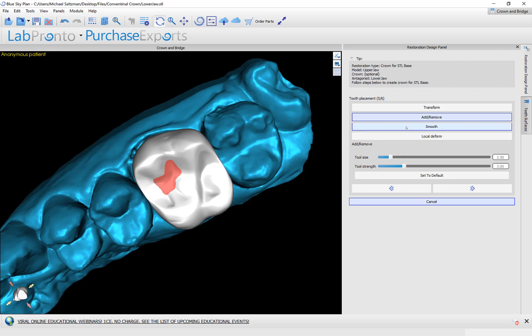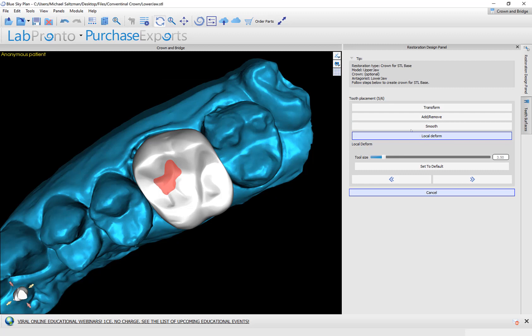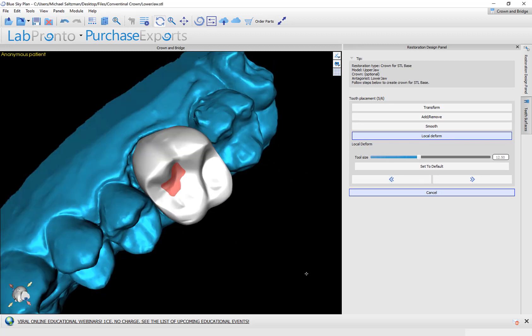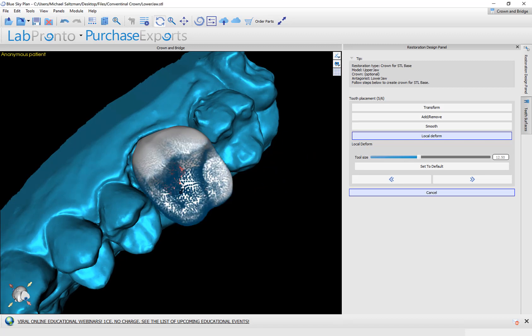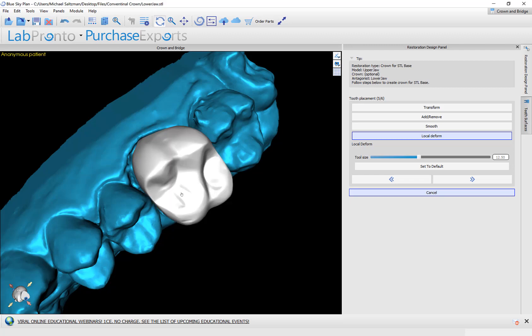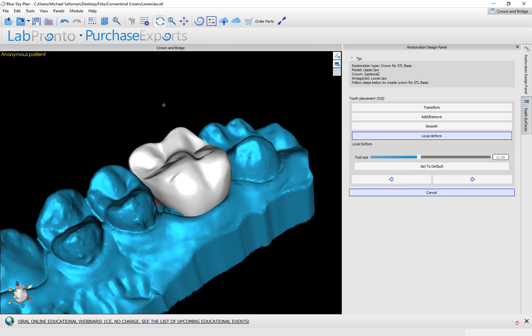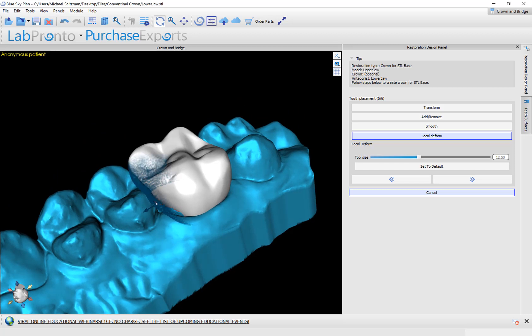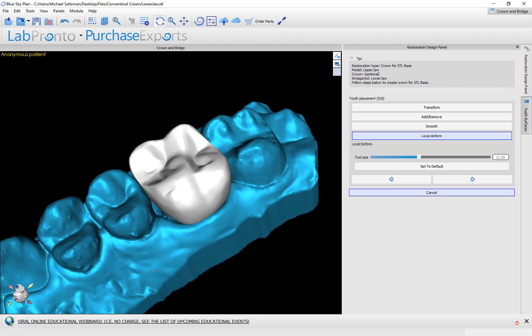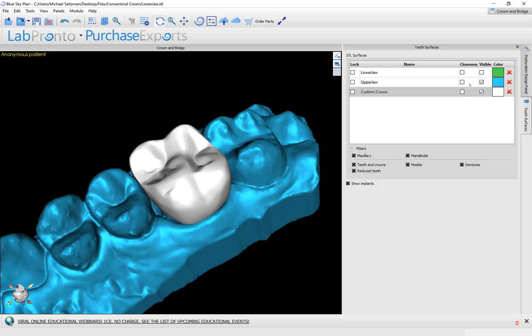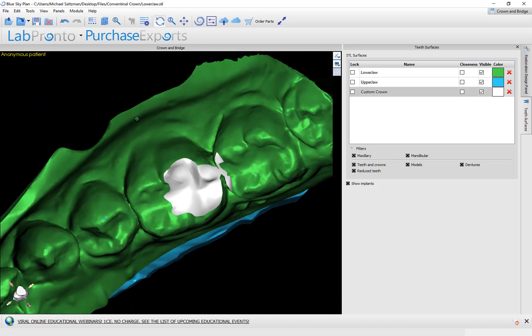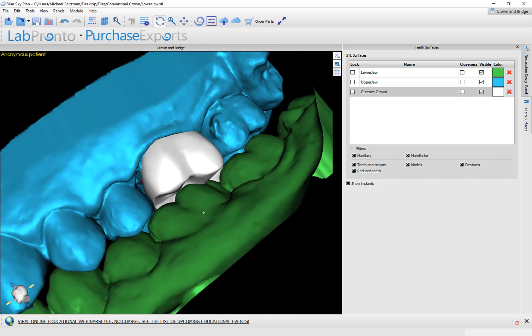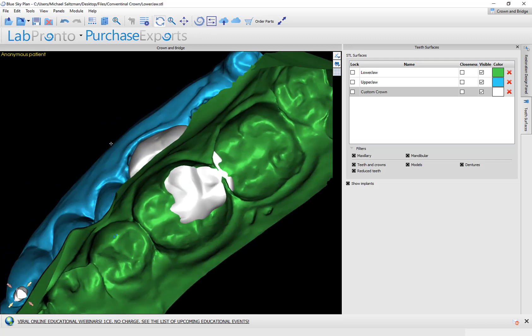We have the smooth button that could smooth out any area. We also have local deform, and what local deform could do, especially if you make the tool size larger, is you could hold down the shift key and kind of extrude the entire tooth, keeping the shape more or less intact. You could raise up the surface of the tooth. We also have the ability on the model for the opposing arch. We can mark it as visible, and we could see the tooth and how it interacts and intersects with the opposing arch.